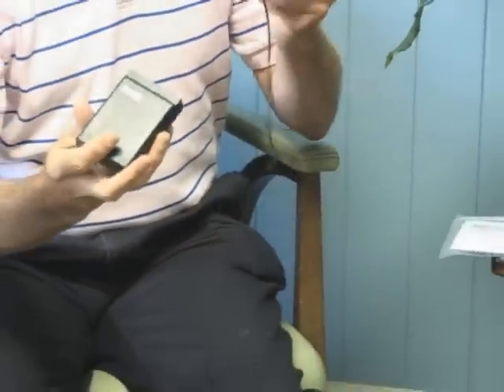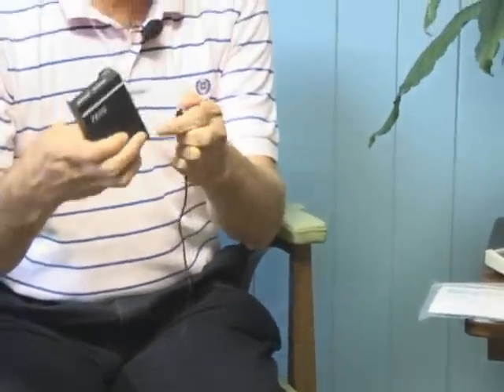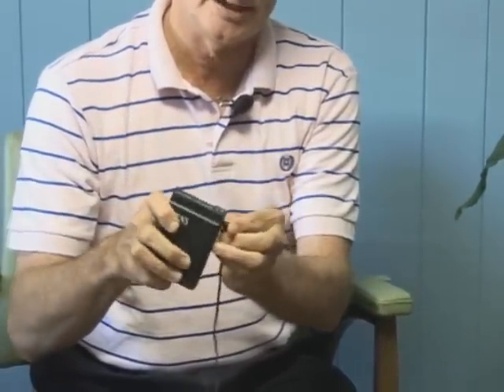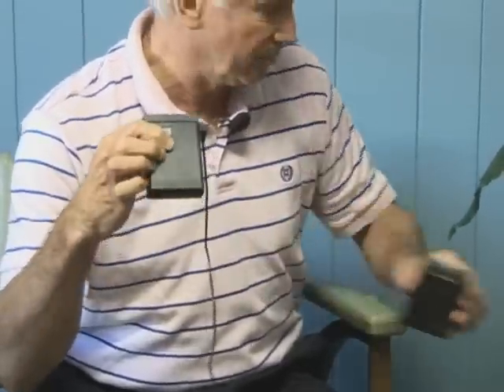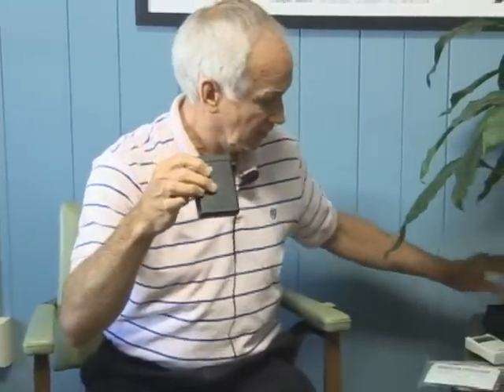Your cable is used to conduct electricity from the unit to the electrodes. You plug your cable into the side, or wherever the port is — sometimes it's at the top. Once you get your cable, or cables, you actually have two cables that come with the unit.